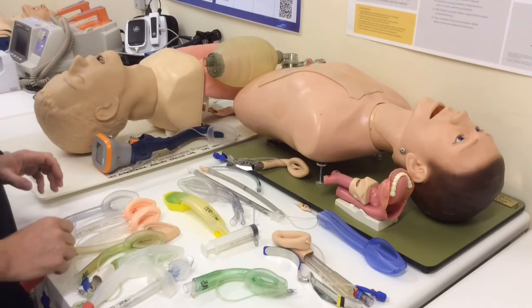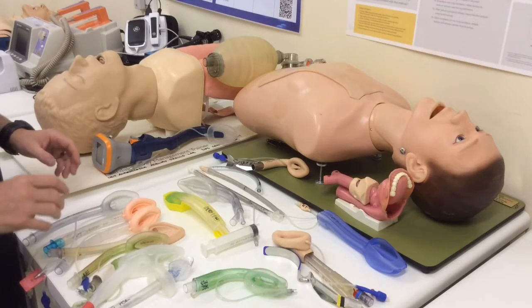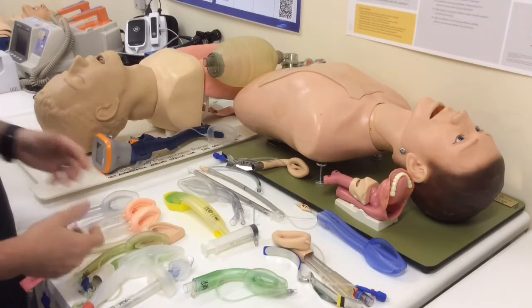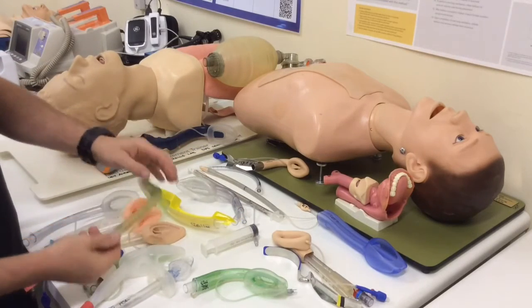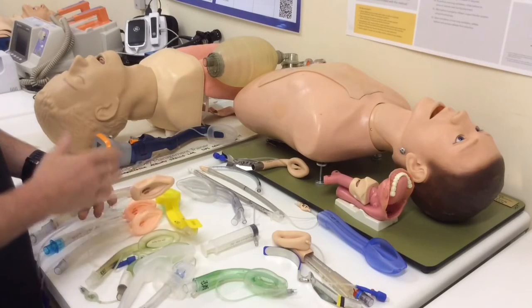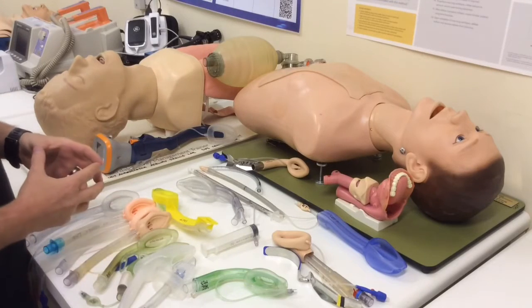How do I choose the right size? So you can see I've got a large spread here. These devices are typically sized according to the patient's lean body mass or ideal body weight, and sometimes according to the patient's height. And you'll know that ideal body weight and height are often reasonably equitable. So you'll see on most devices, somewhere on the packaging on the device themselves, it will have printed what size range is appropriate for this particular device for this particular patient. And the sizes tend to go 1, 2, 3, 4, 5, sometimes they're half sizes, and you'll find that a size 3 in one device is probably of a fairly similar range in size to a size 3 in another device.